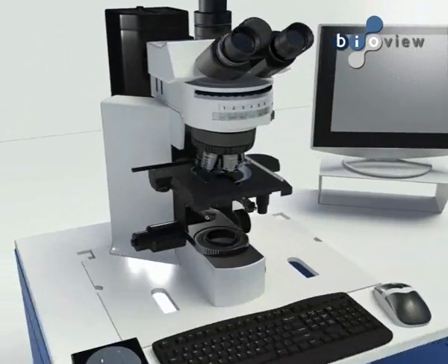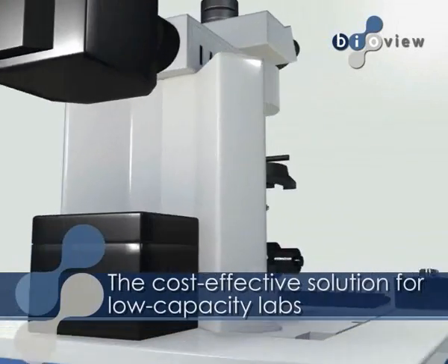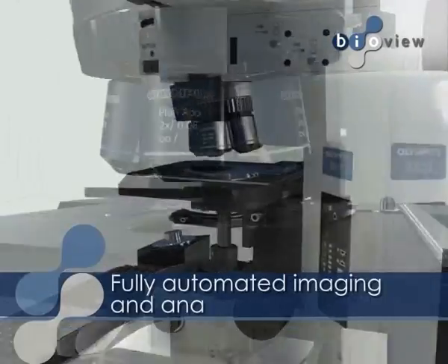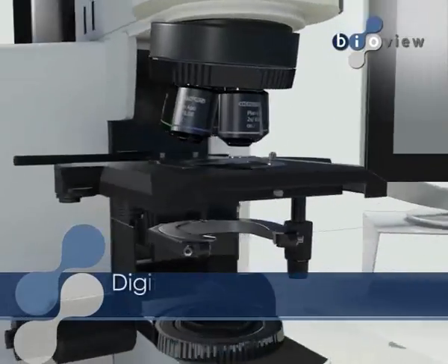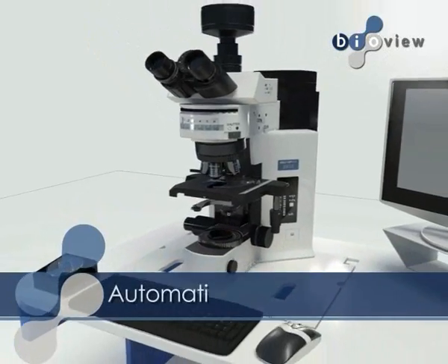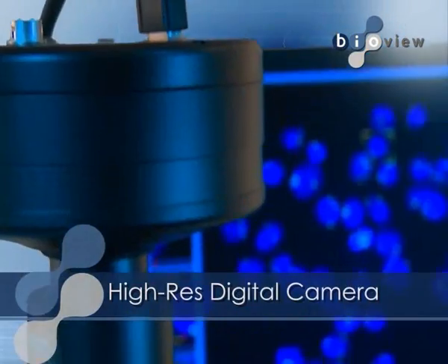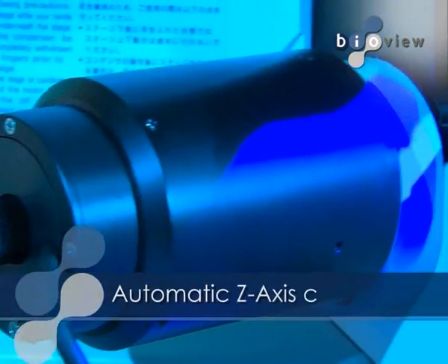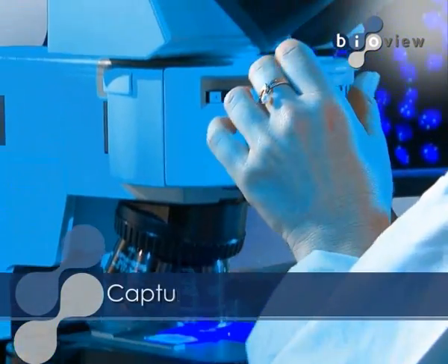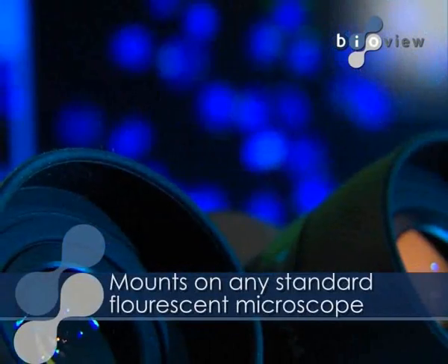Combining the best of BioView's high-end technology, the Legato meets the industry challenge for a cost-effective microscope expansion kit, offering imaging and analysis solutions for FISH hybridized tissue and cell suspension samples with report generation in a variety of formats. Legato consists of a high-resolution digital camera, automatic Z-axis control, and a computer which provides offline and remote analysis tools, mounted on any standard fluorescent microscope.